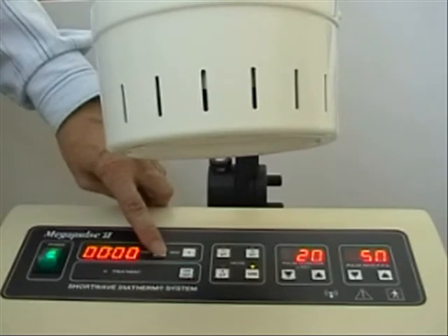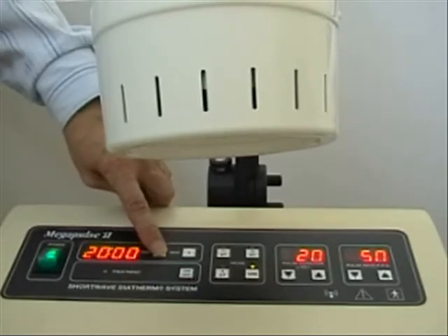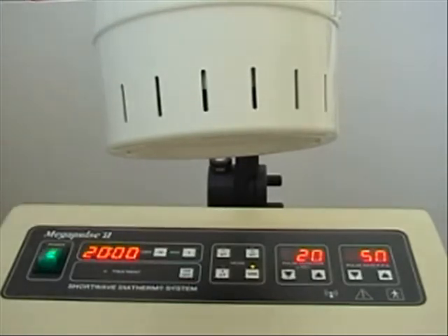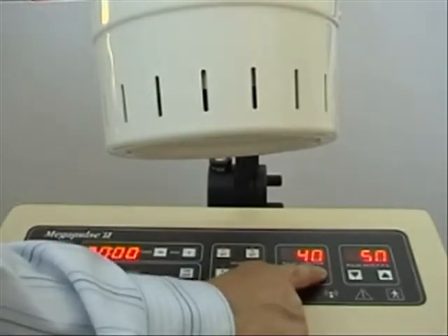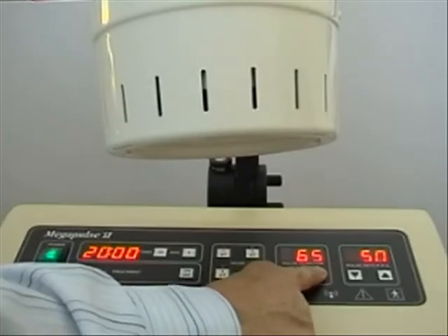With pulse widths between 20 to 400 microseconds and pulse repetition rates between 50 and 800 pulses per second.